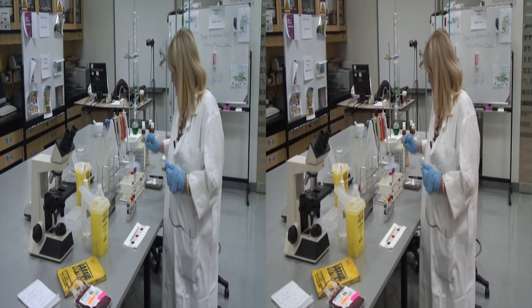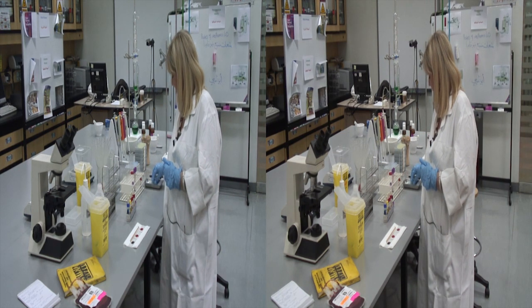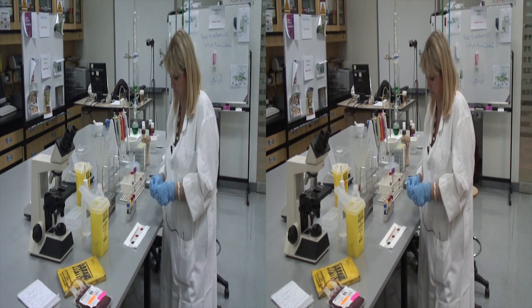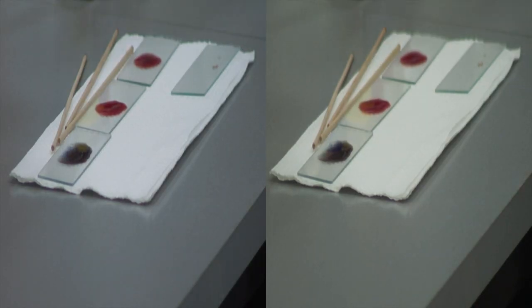Similarly, the rhesus factor can be determined. A drop of blood can be added to a slide and the straw colored anti-D reagent is added.